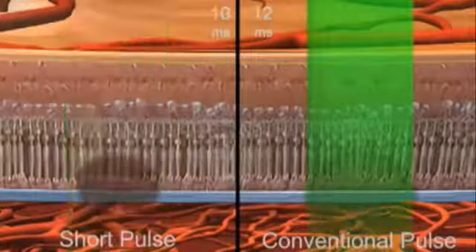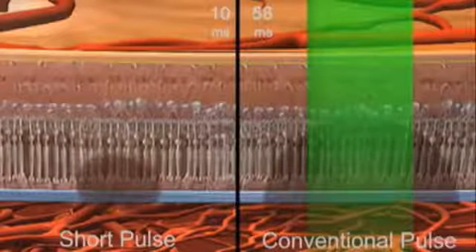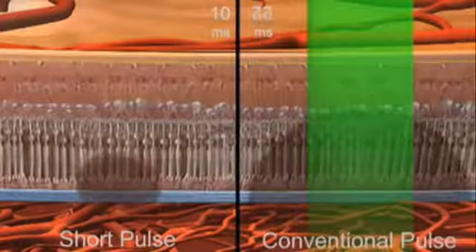With longer pulse durations, more thermal energy spreads in all directions, heating larger volumes of tissue.